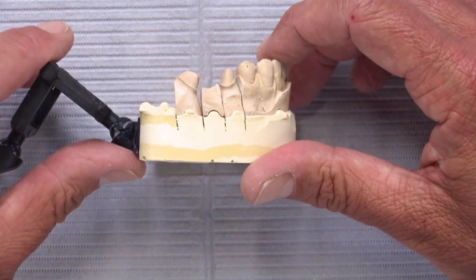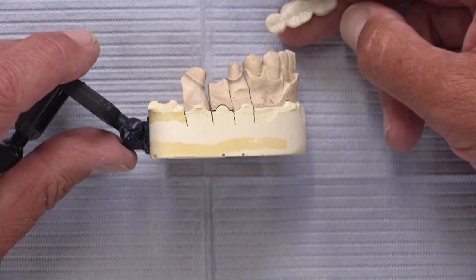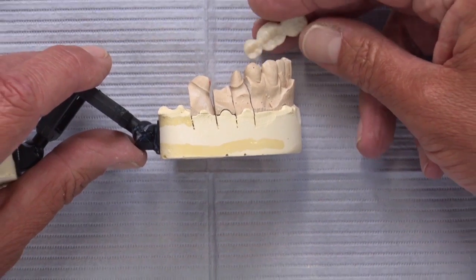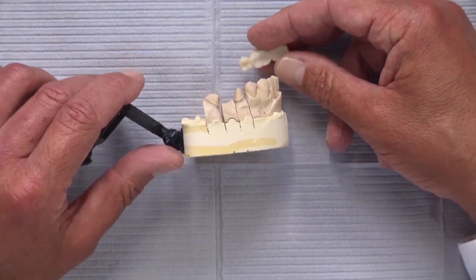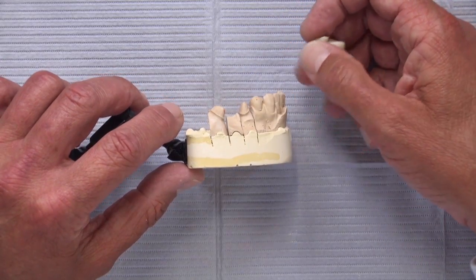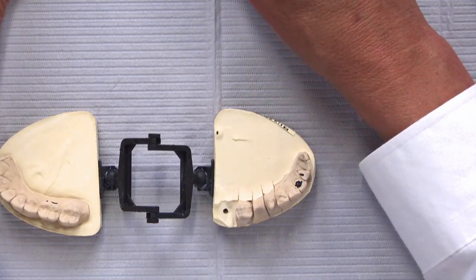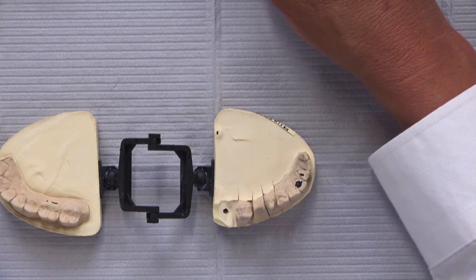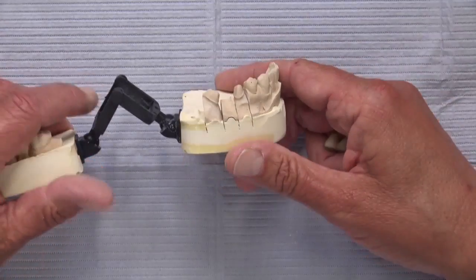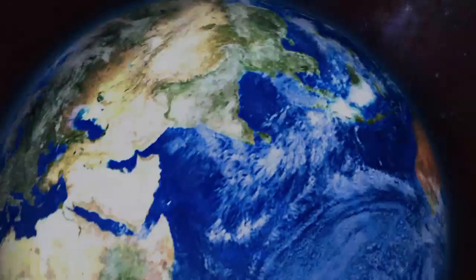In the meantime, we're still dealing with undercut problems like these. Whenever a dentist asks us to adjust the inside of a crown there's always a price to pay — opening the margin more than it already is. We're all shooting for 50 microns on our best day, and this can easily add another 100 to 150 microns. So it behooves everyone to get this right, and we're happy to send reduction copings to help. Hopefully as more dentists get scanners, we'll move toward a virtual dental technician who watches the case in real time, gives feedback on undercuts, and can fabricate a bridge without playing around with the inside of it.